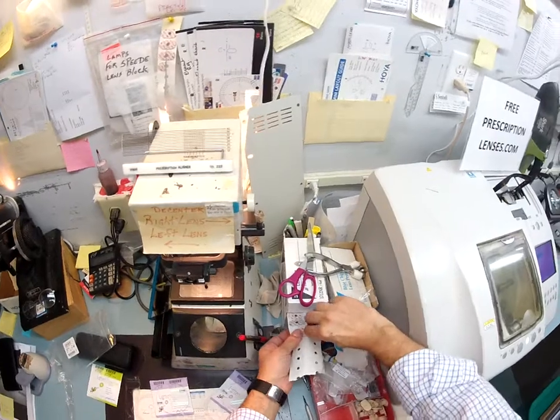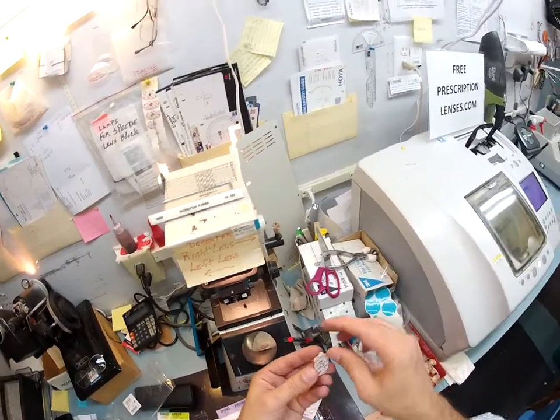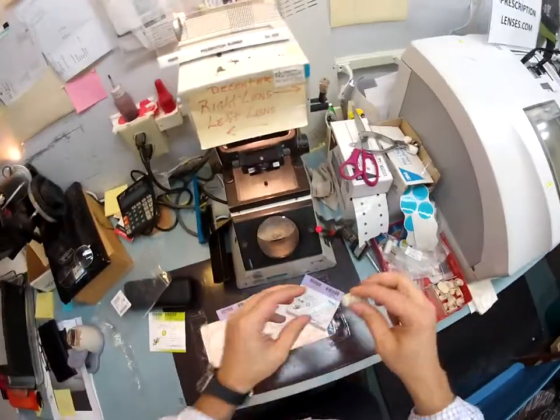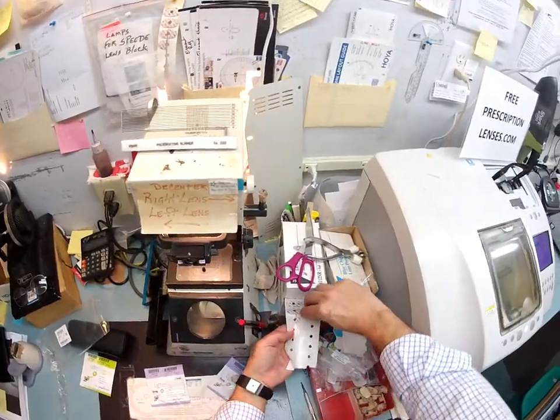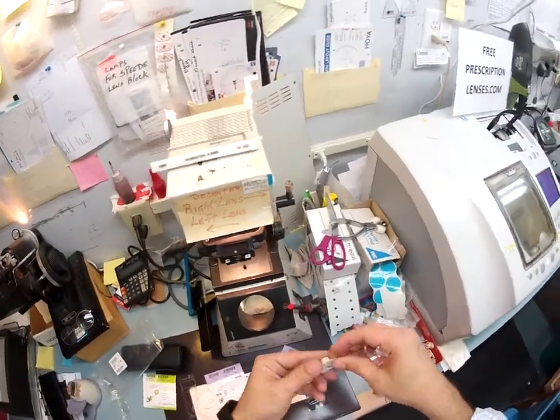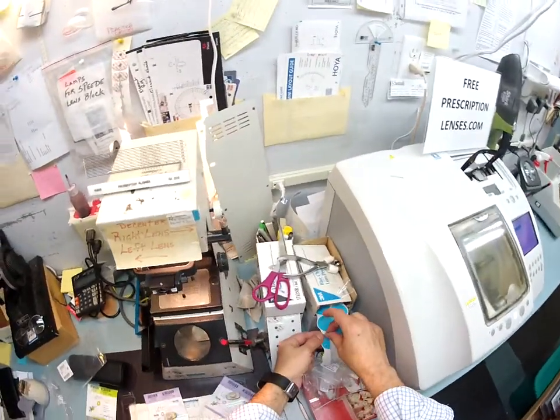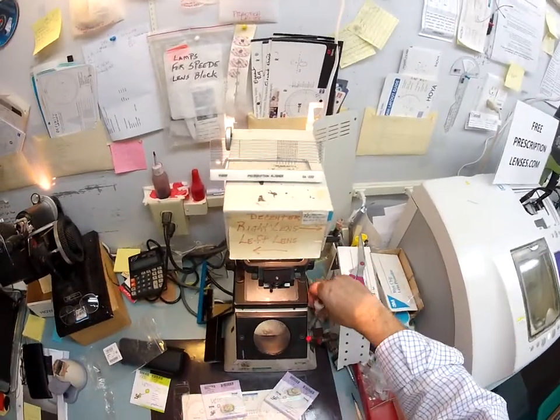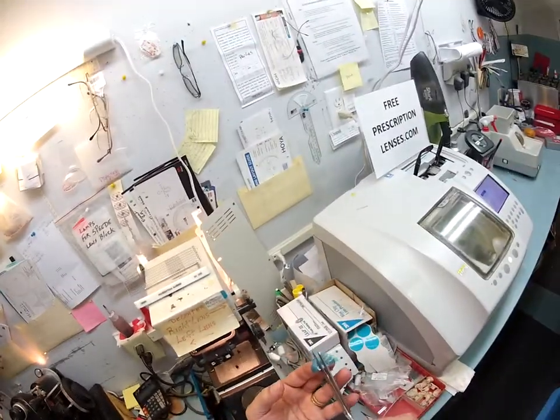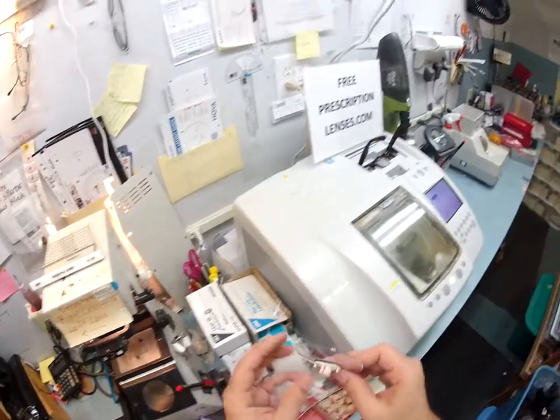I'm going to take a little double-sided adhesive sticker from 3M, put the first sticker on there, peel the other side away to make it sticky, and put that right on your lens. Now let's do the same thing for your left lens — put the pad on this one, pull that away, and put that on there. One aspect of your lens is that the anti-glare coating is also a hydrophobic coating, meaning it hates water, so it's going to be that much more slippery. So I'm going to put another little sticky pad on the back side of the lens while it is cutting.